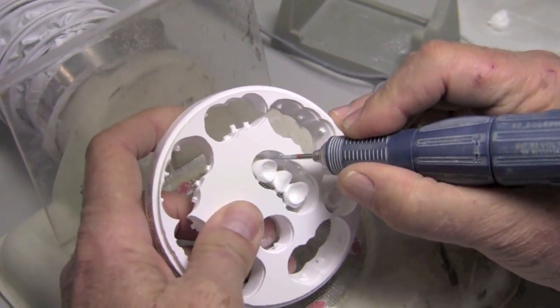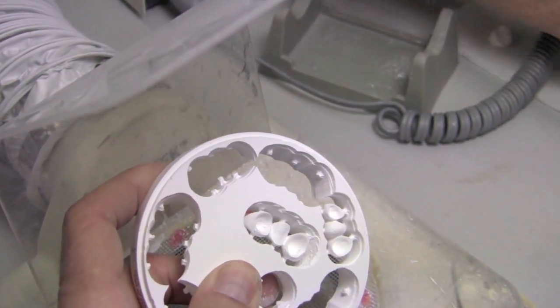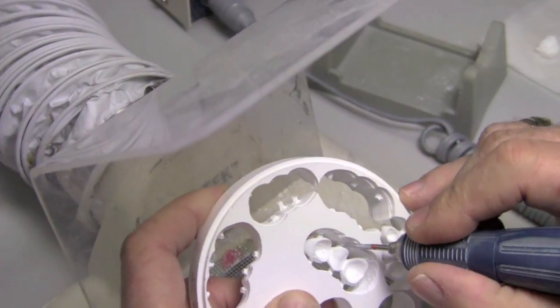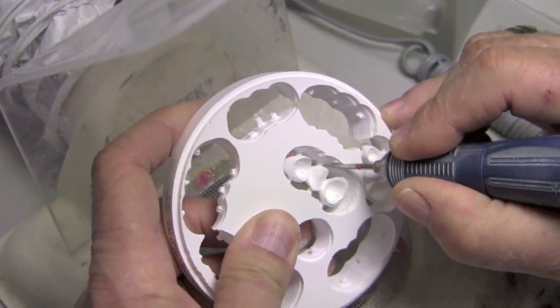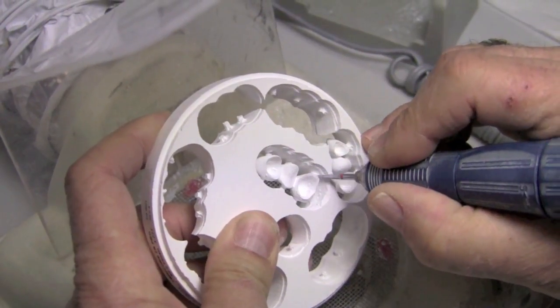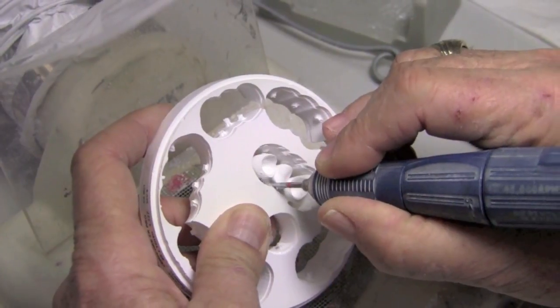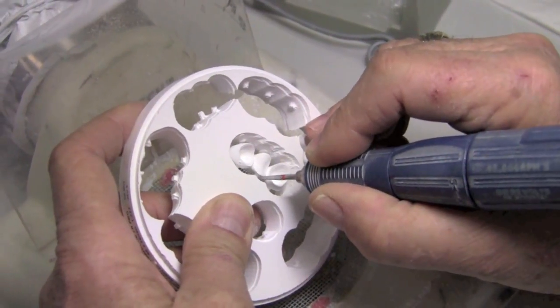But I want suction too coming through because this dust is really pretty dangerous. So this tool will go right through here really easy. And because it's so long, we have access without having to turn it over necessarily, and without having to touch and maybe mess up our existing units.